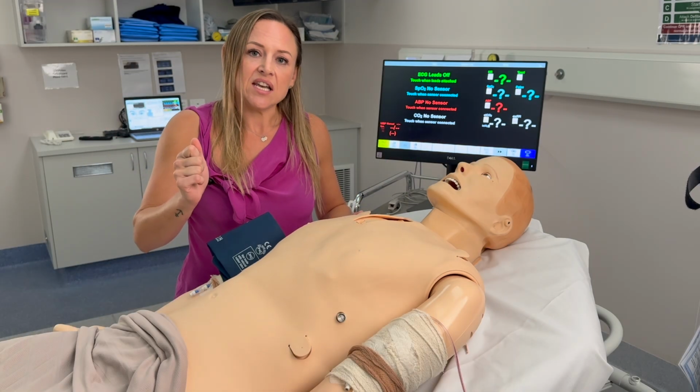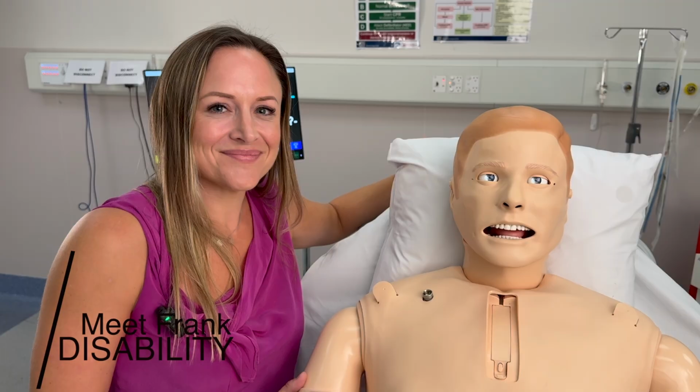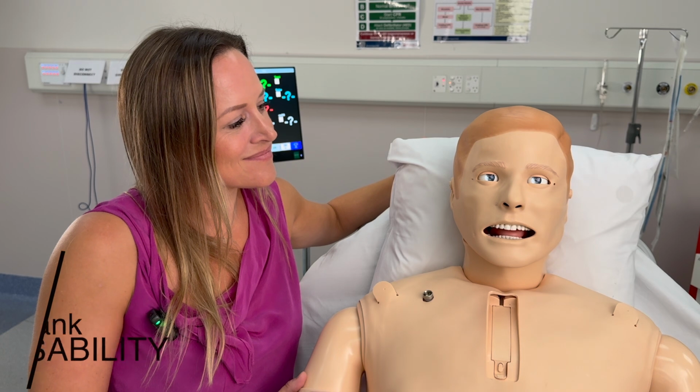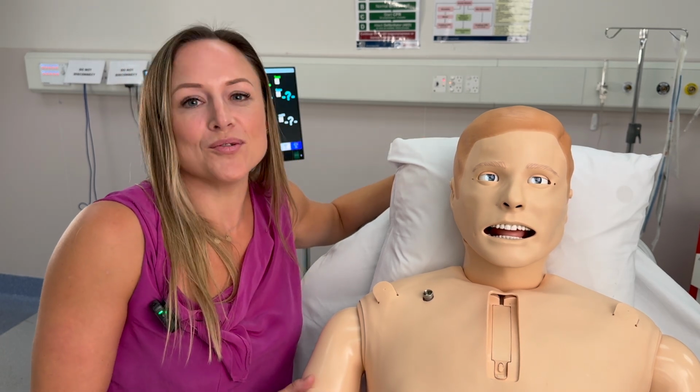So now let's go to D, and we'll look at Frank's neurological capabilities. Hello, lovely Sim team. My name's Frank. I look forward to seeing you on the day. As you can hear, Frank can also talk to us.